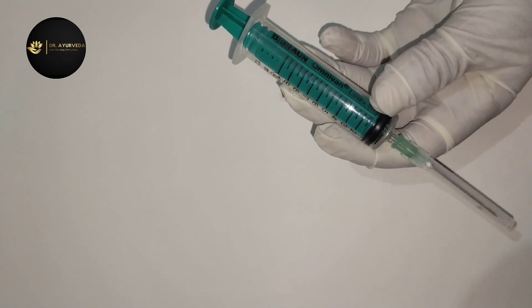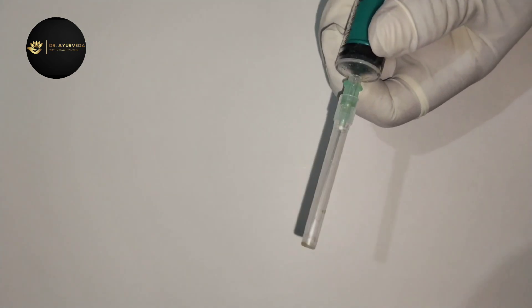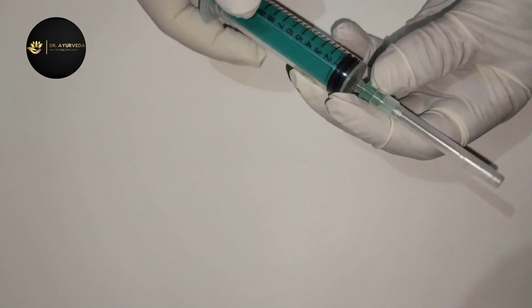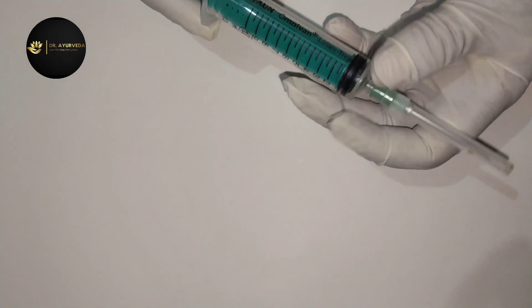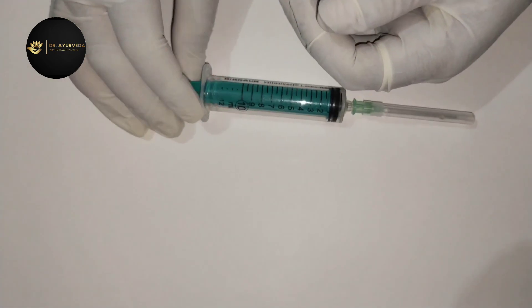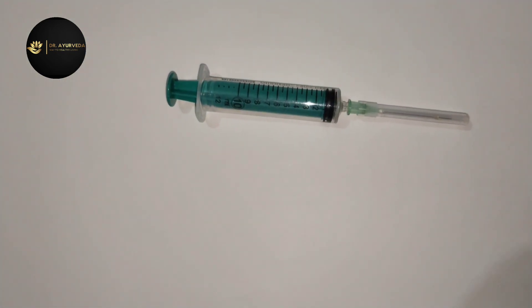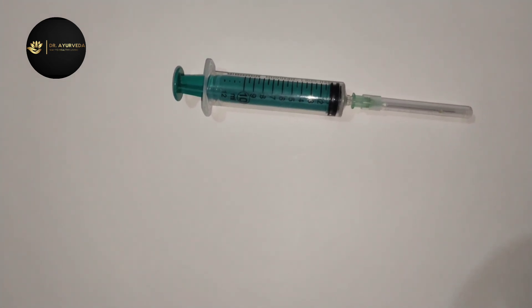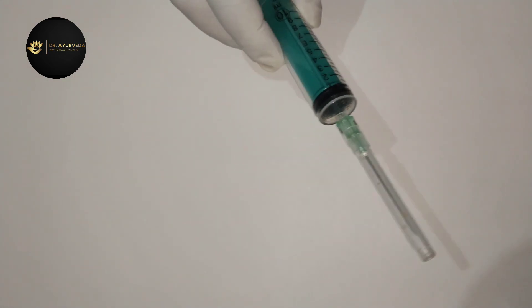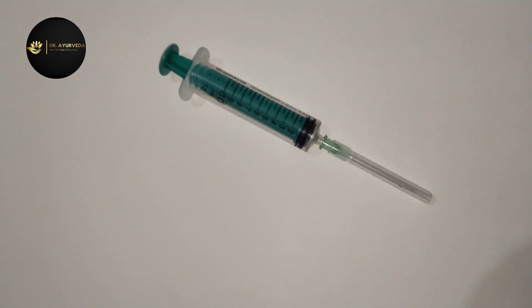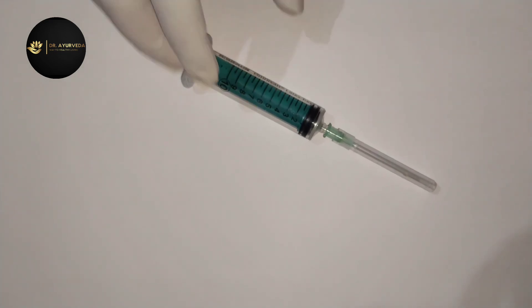The use of the syringe in the medical field is very important. If we look at the non-medical uses, we can discuss research projects. So today we are going to discuss about the syringe and the parts of this syringe.